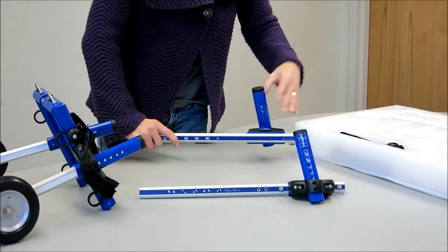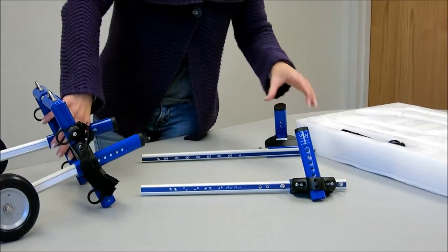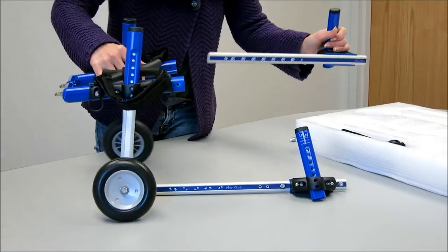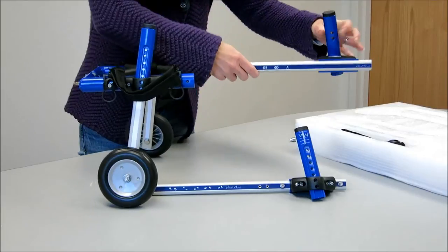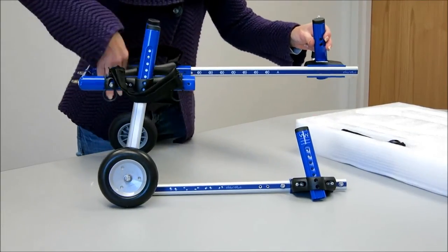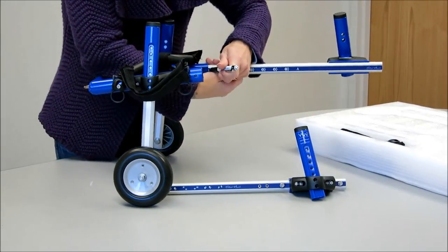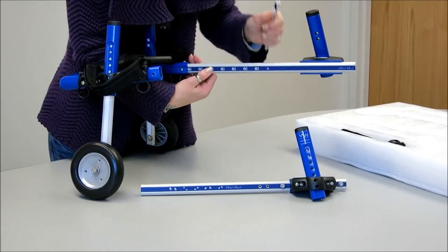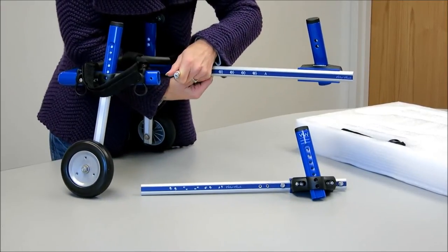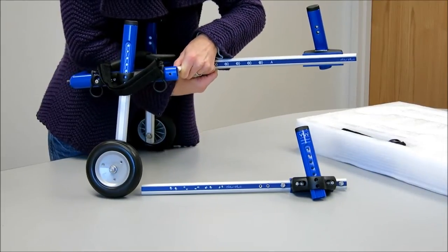The left and right is with you standing behind the cart. Okay, so you take the wheelchair, you install the side extenders just like the ones you just removed. Push the little button in, line it up to where you need it to be for the length of your dog.